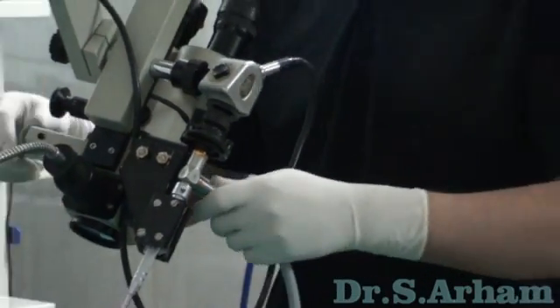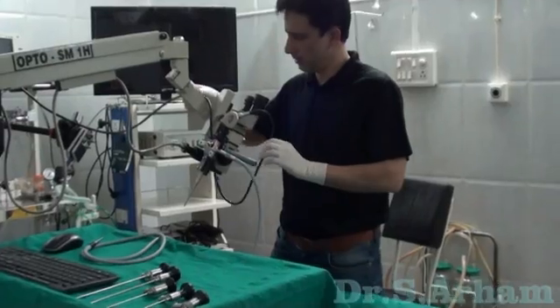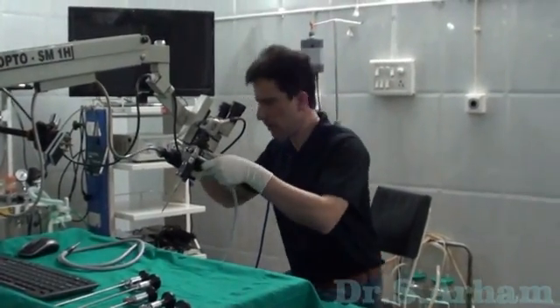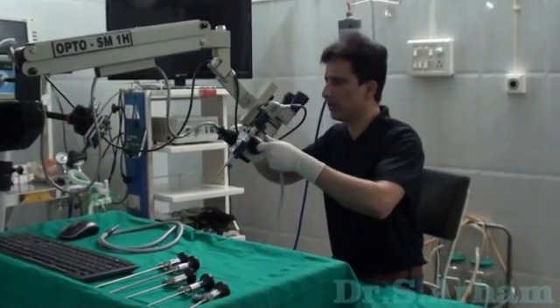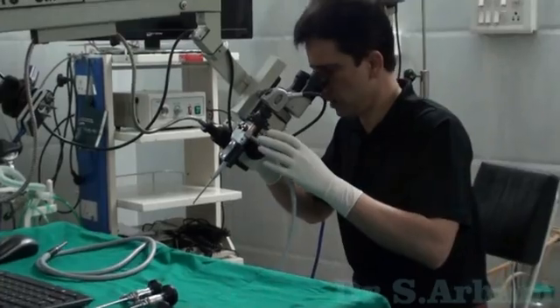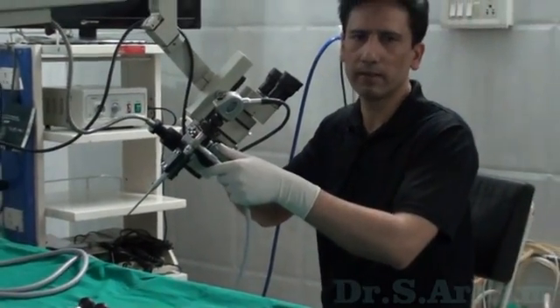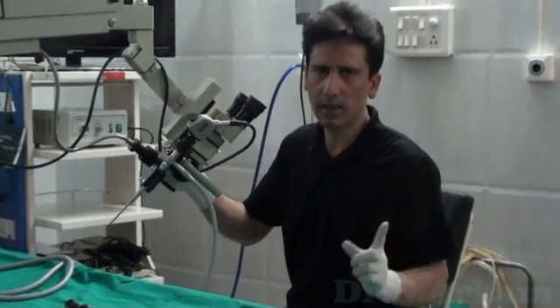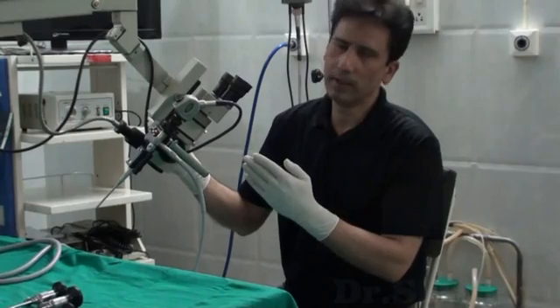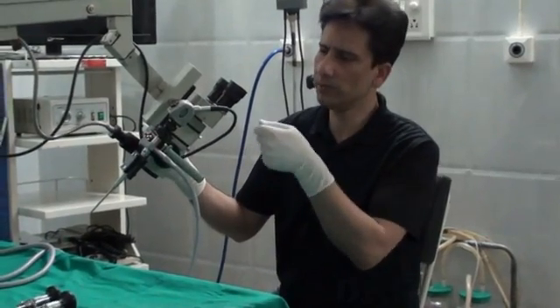When I am doing an ear surgery and I am using a microscope like this, I can use this endoscope anytime at will. You can use the microscope and the moment you feel like using the endoscope, you can switch over within seconds. If you are using a single light system — I am using the cold light LED system — you just change the cable from microscope to endoscope, and it is a very quick procedure.